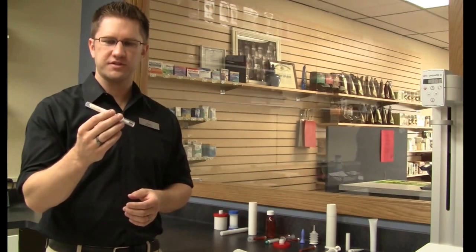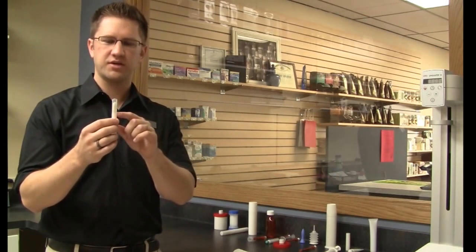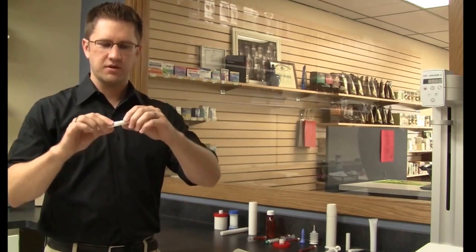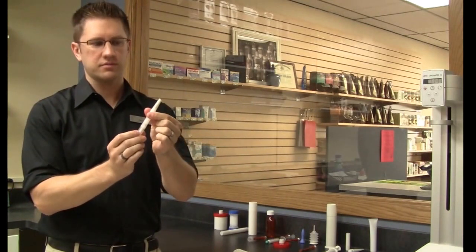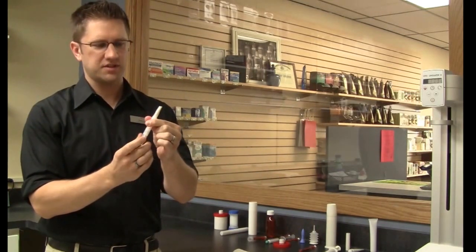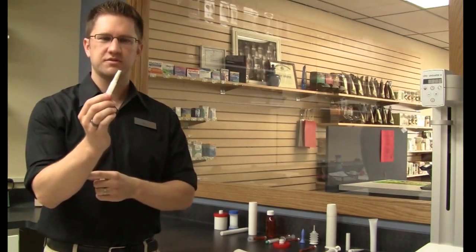When you first get the device from us it may have to be primed because there may be an airspace in the top. What you'll do is remove the cap, grab it by the bottom, and just keep twisting until a little bit of the cream comes to the surface.